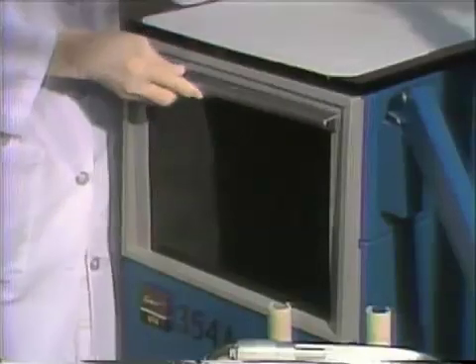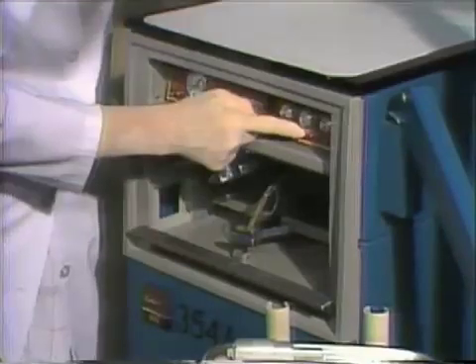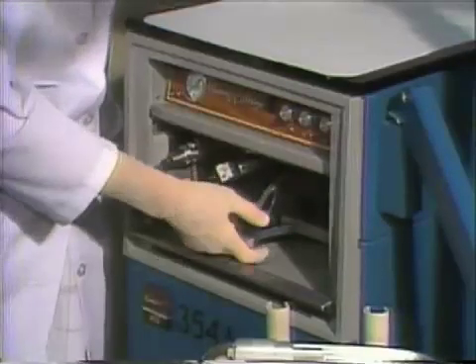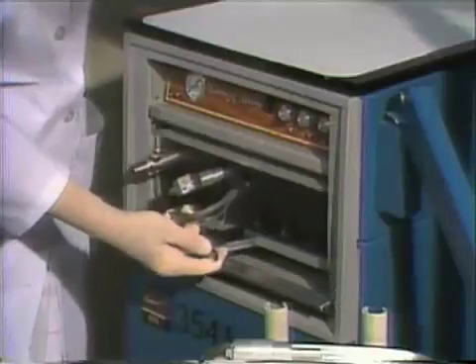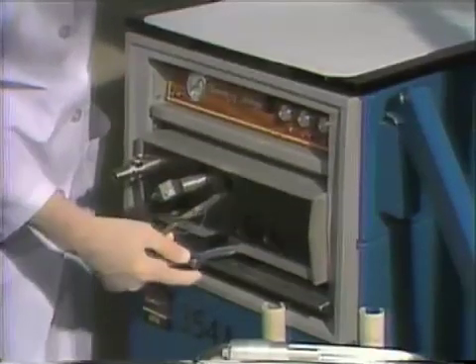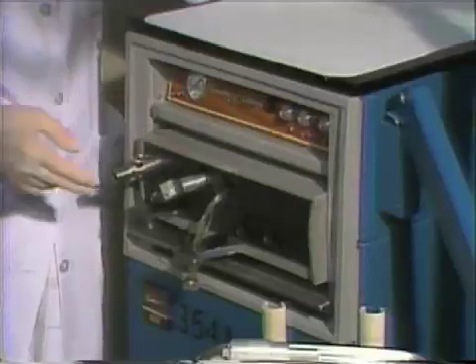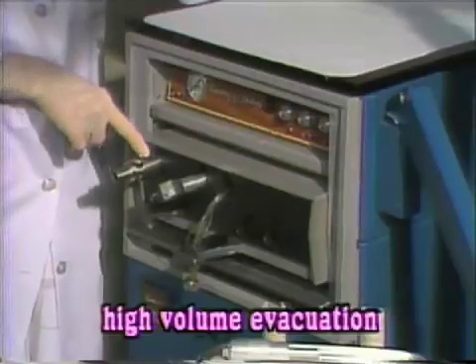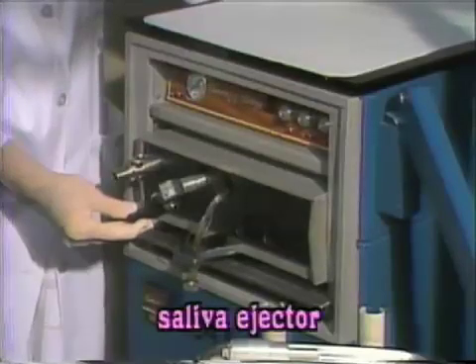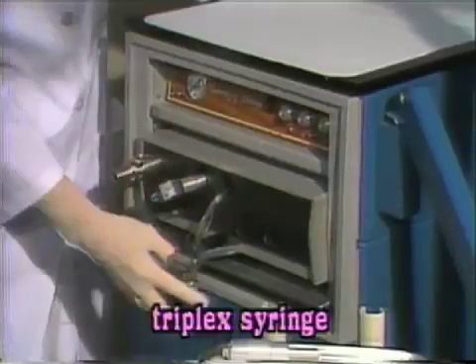To turn on the master switch, push down on the sliding panel door until it clicks. Verify by checking the channel light. Pull on the T-shaped carriage handle until the carriage locks in place. The instrument panel contains the following couplings: a high-volume evacuation system, saliva ejector suction system, triplex syringe, and electro-torque cord.